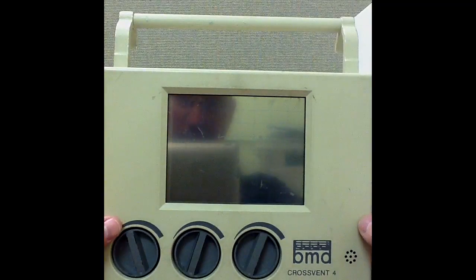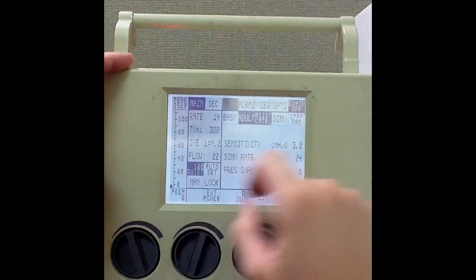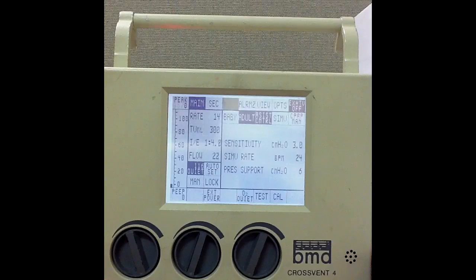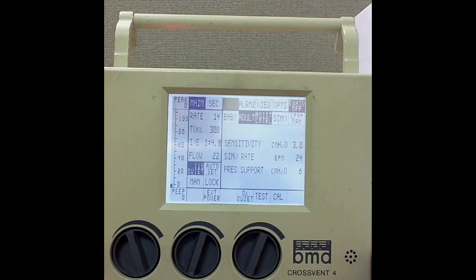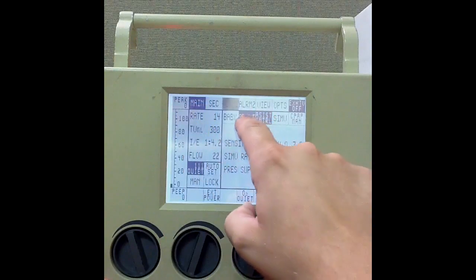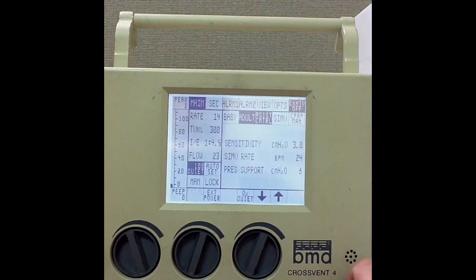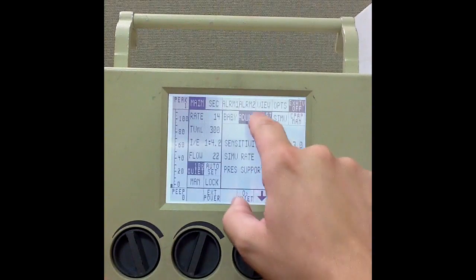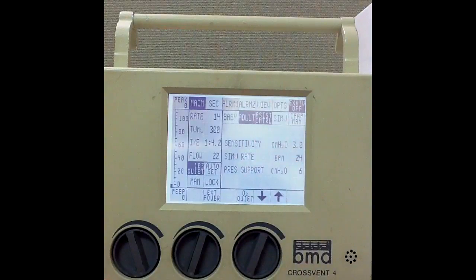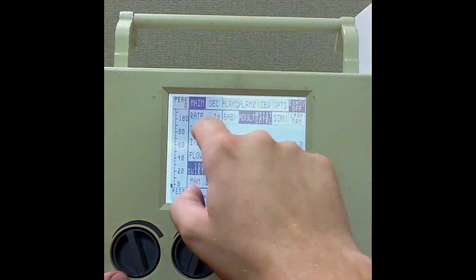We'll go ahead and turn the ventilator on and give ourselves some time on the alarm. The first thing — I want volume control ventilation — so I need to make sure that it's on main, and that is selected. I select adult, which is selected. My mode is assist control, so I want assist control selected here, which it is.